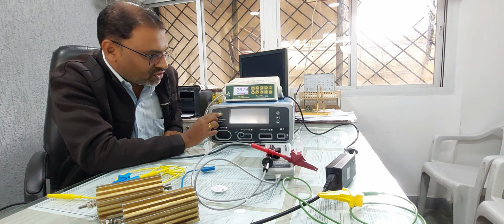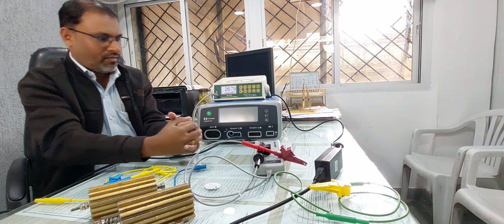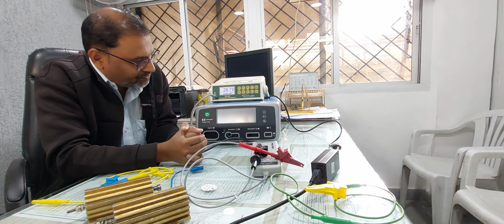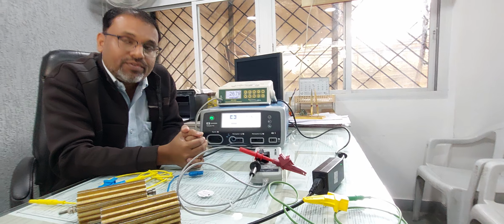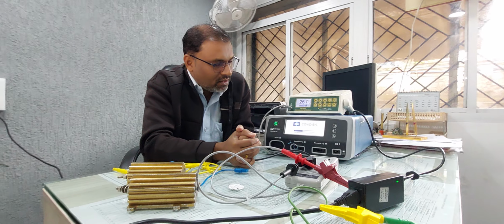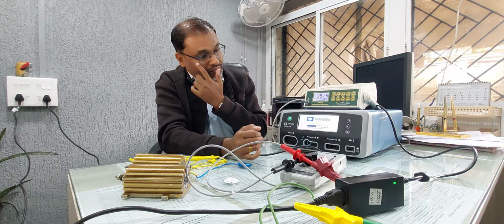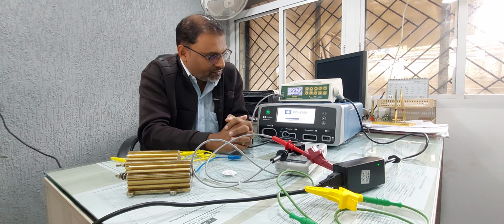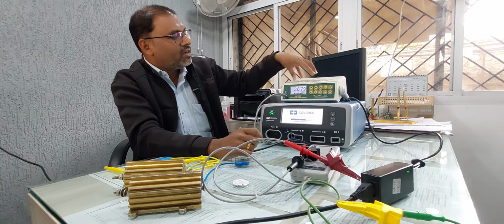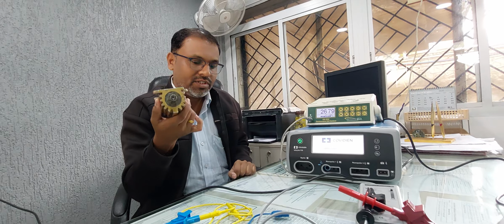First we will switch on the cautery. Wait for some time. It takes a few seconds for booting. Parallelly, on the electrosurgical unit we have to adjust to 5 kilo ohm, because the resistance we are going to utilize for the calibration is 5 kilo ohm.